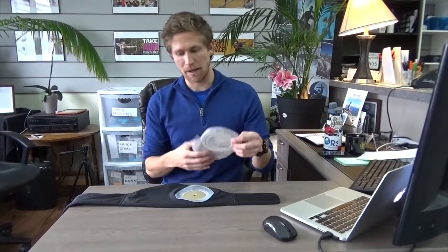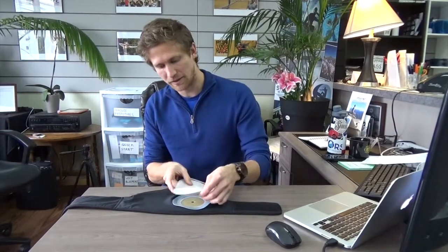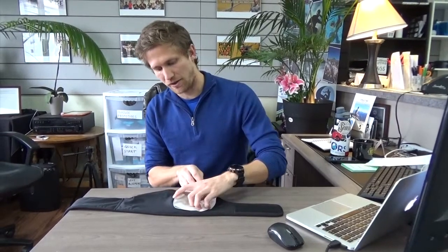When it's inside the belt it will lay like that — you'll have a little bit of space underneath — so that when you apply the bag to this base plate here, you apply it straight on. You just want to make sure you're measuring so that the belt has some space to fit underneath it.